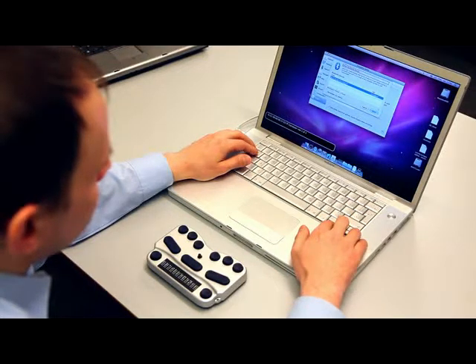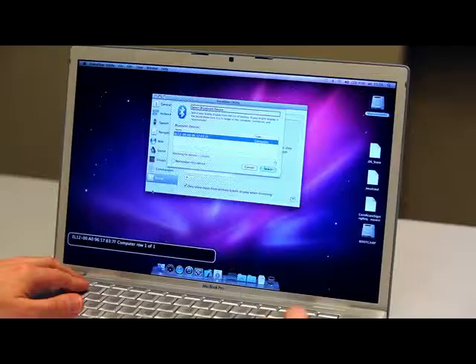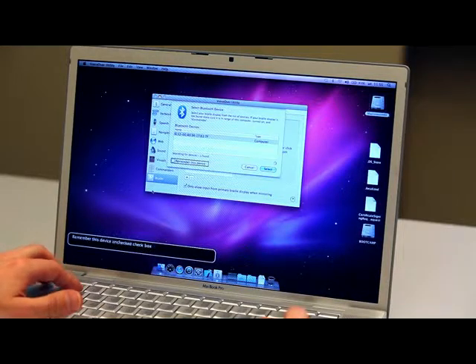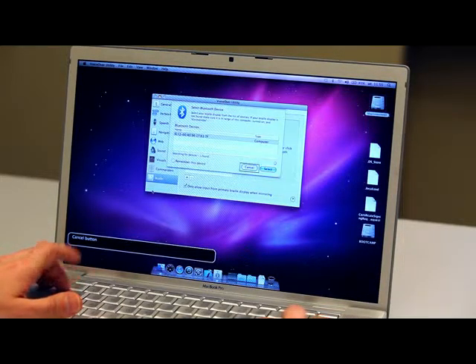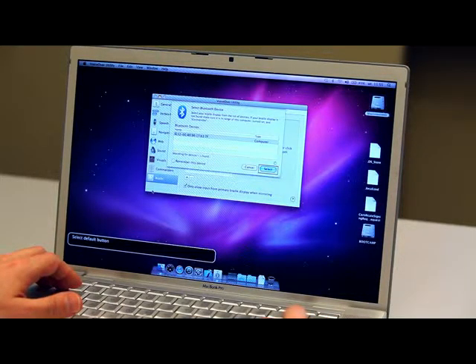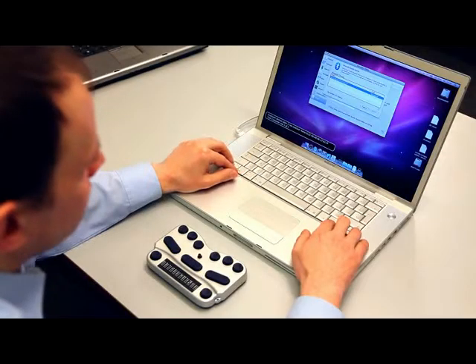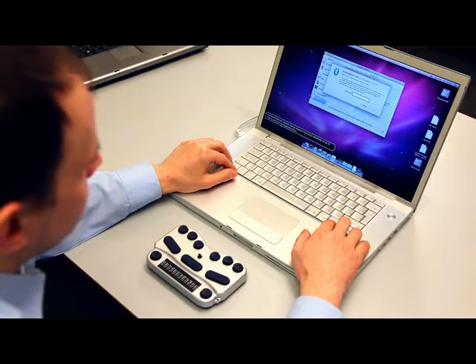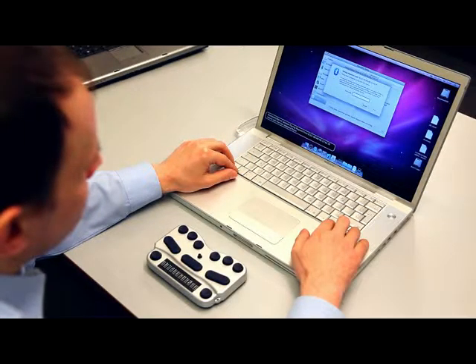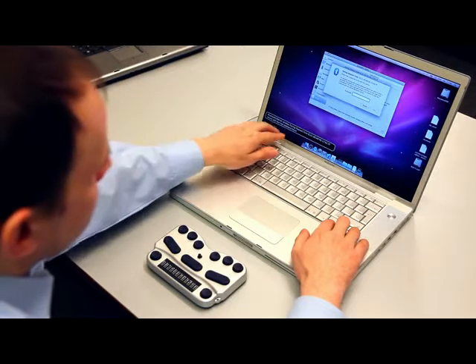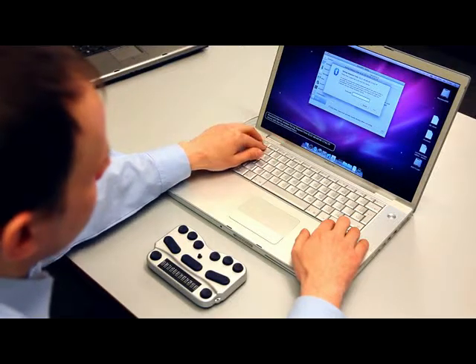Tab to the list to hear the devices spoken. Select the Braille Pen 12 from the list of available devices. It will show as a number beginning with EL12. Press Select.